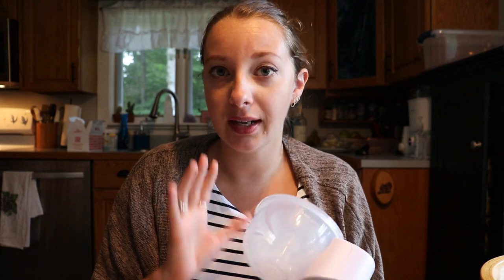It's a great little pump, but before I get into my personal stuff with it, I am actually using it right now just on this one side. I wanted to show you guys how much it does stick out. If you had two in, you would look kind of chesty, but otherwise I don't really care. I think it's way less revealing than when you have the actual flanges and everything. It's not too bad. As for noise level, I honestly don't think it's too bad. You'll probably be able to hear it throughout this video, but I don't think it's that bad. If you're sitting in a completely silent room you are going to be able to hear it, but I think the benefits of being completely hands-free make it totally worth it.